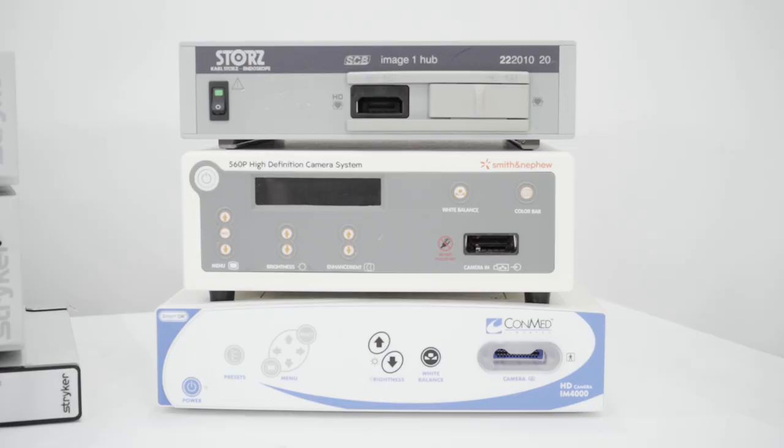One of the nice features about the Stryker Clarity Video System is that it can be used with any other video system that outputs a DVI signal, whether it's Stortz, Smith and Nephew, or ConMed.